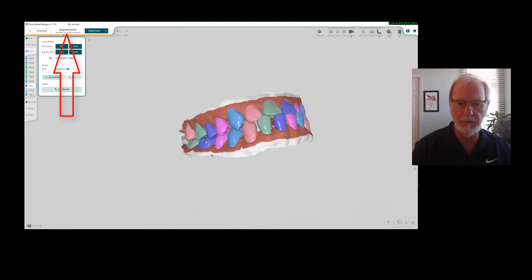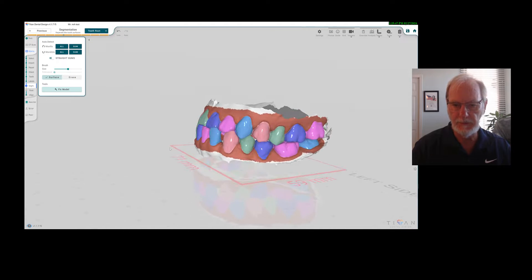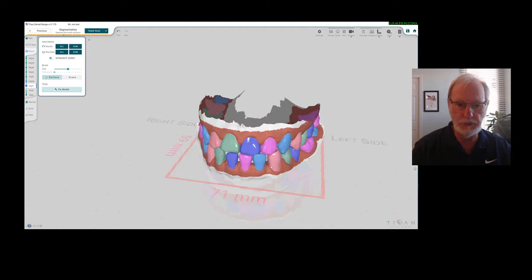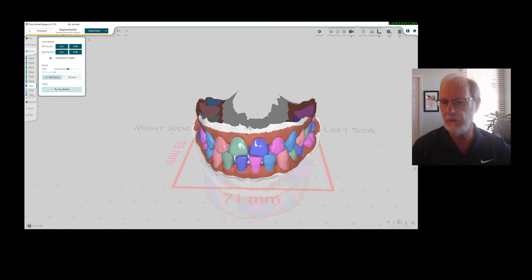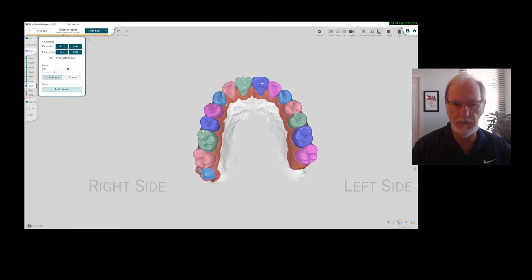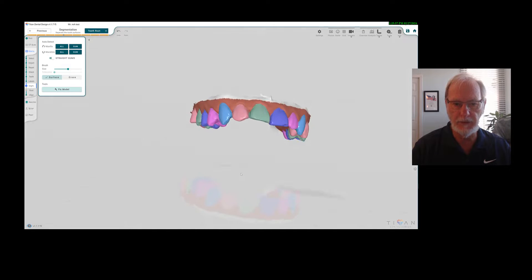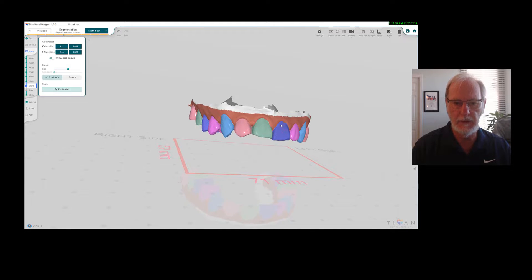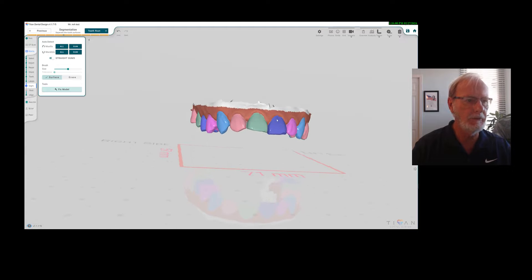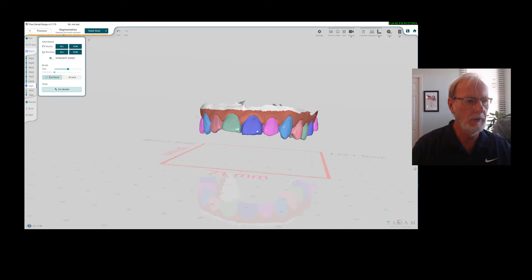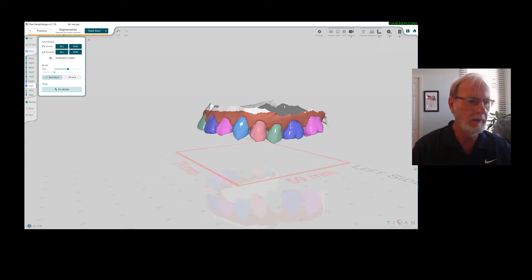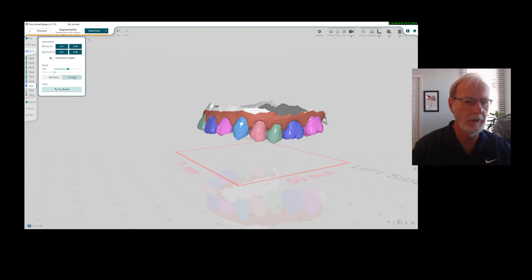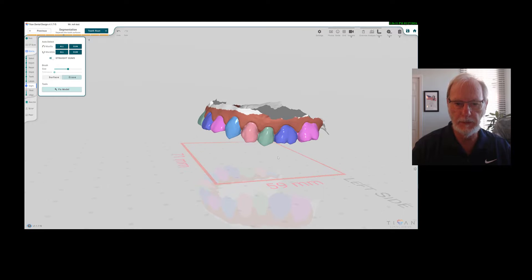The bright color is interesting. Segmentation is usually pretty nice. You can also have a look at this part right here. You can see that the segmentation is really very nice, very fast, and I think you can also brush and change what you don't like. I can erase if I don't like something, or maybe I can erase here just to show you.